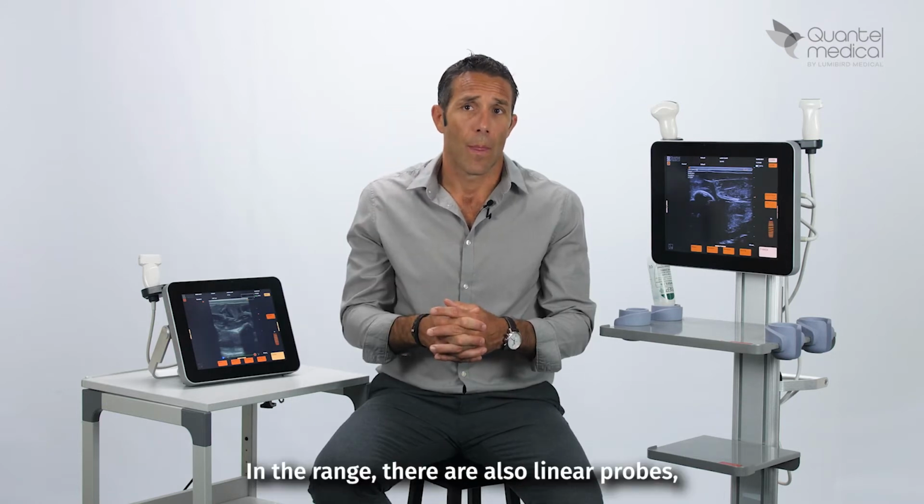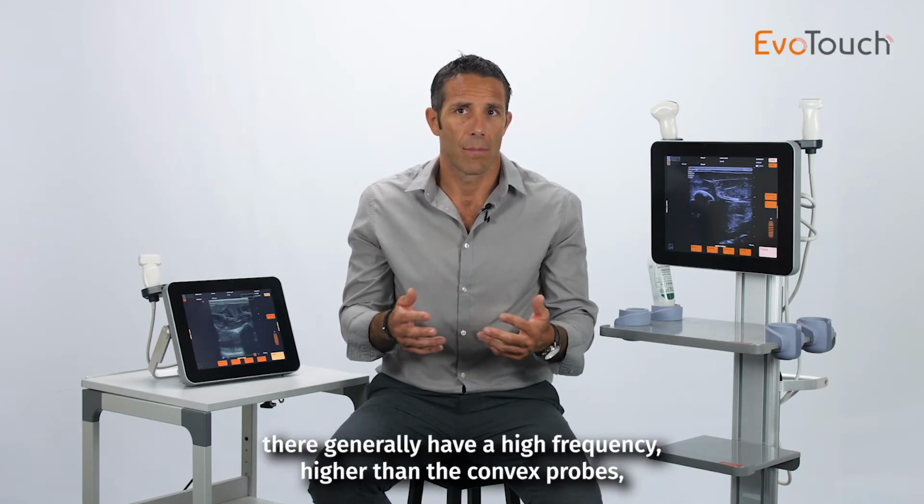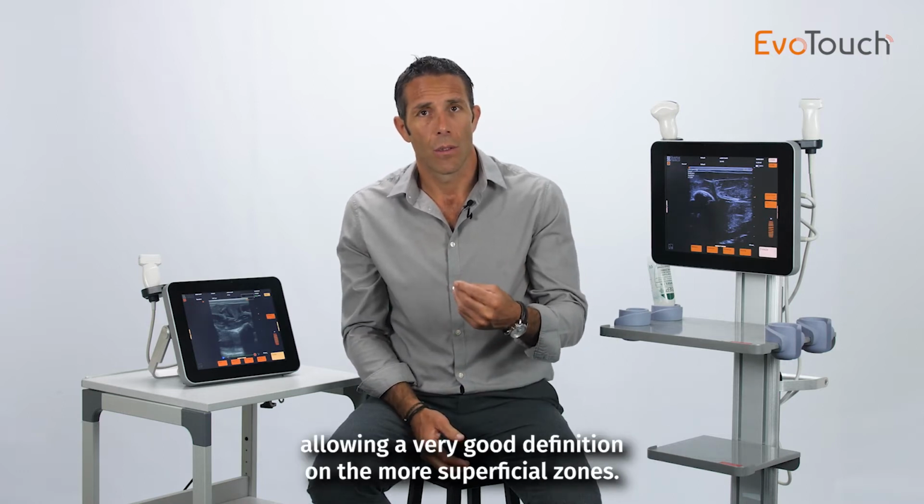In the range, there are also linear probes. They generally have a high frequency, higher than the convex probes, allowing a very good definition on the more superficial zones.